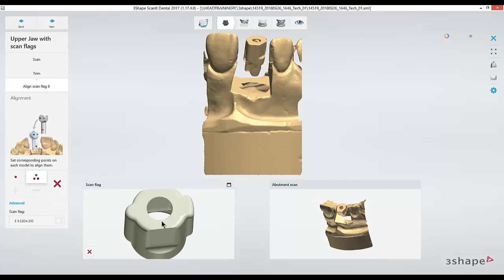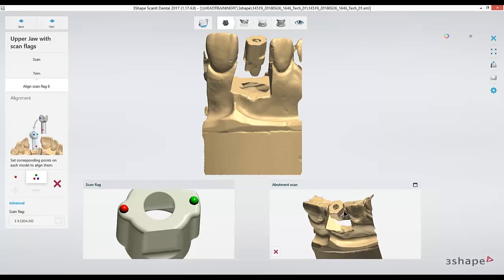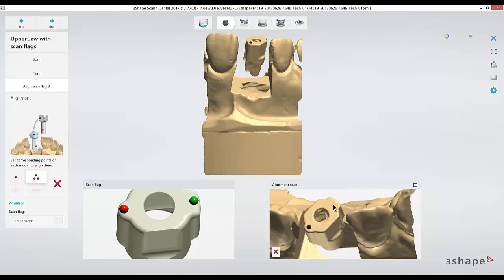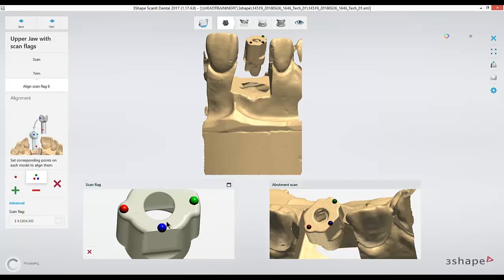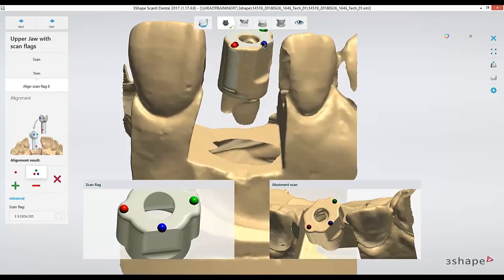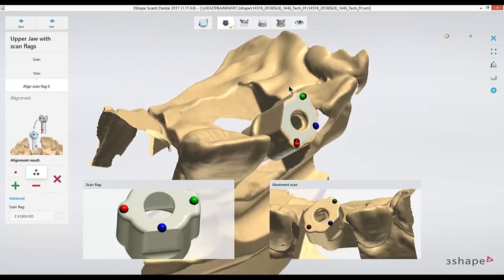Now that I can see that these interfaces do look similar, I'm able to use one or three points to line up these two. It doesn't matter exactly where you put the dots as long as they're in the same relative position on each of the scans. You'll usually get your best alignment if you mark them in a triangular fashion.